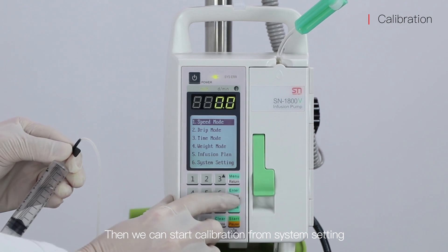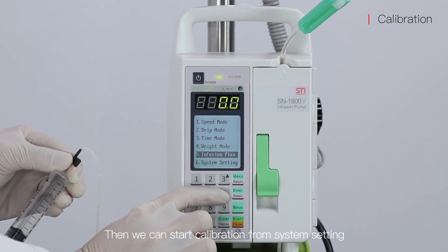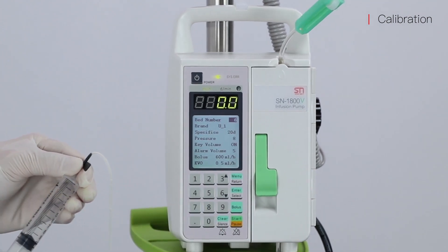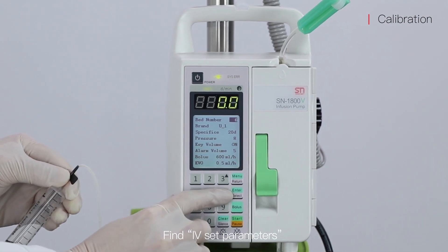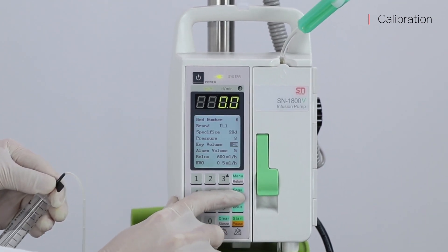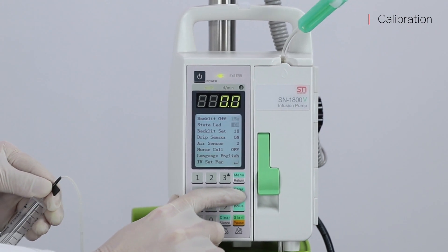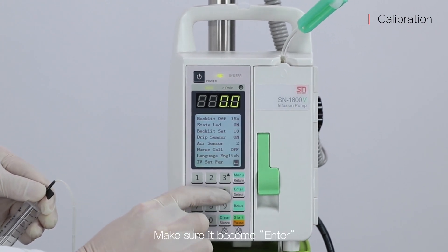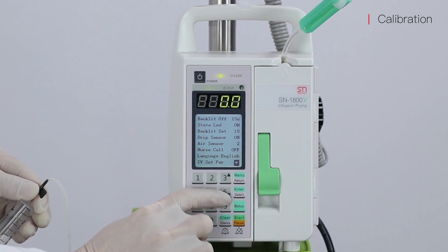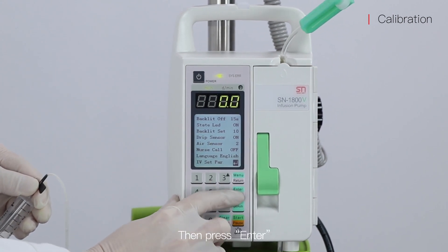Then we can start the calibration from the system setting. Find the IV set parameters. Make sure it becomes enter. Then press enter.